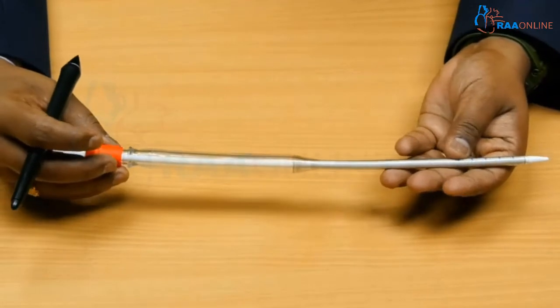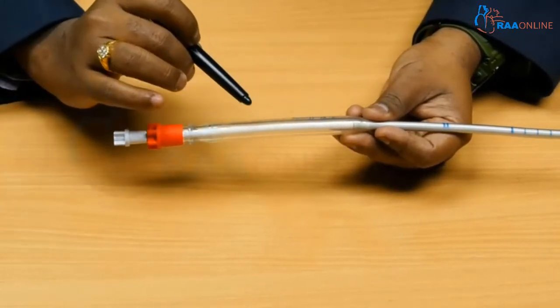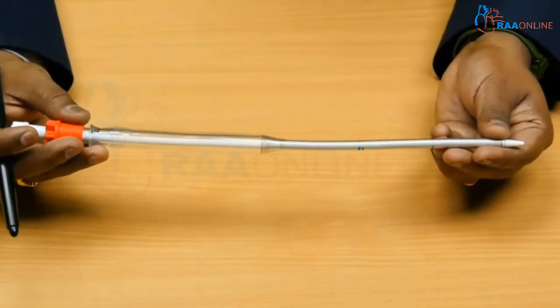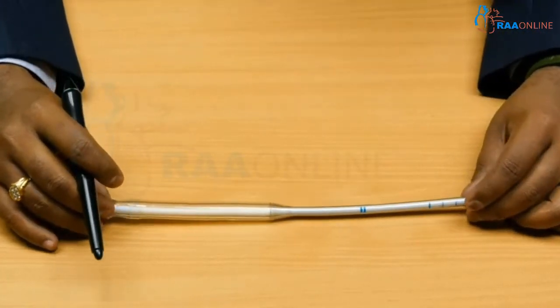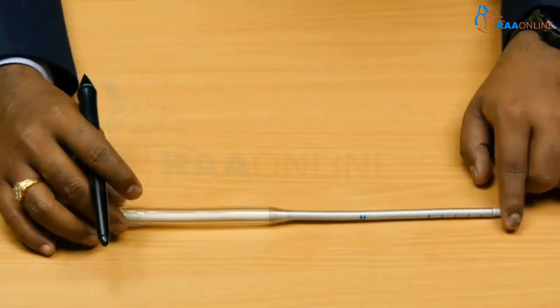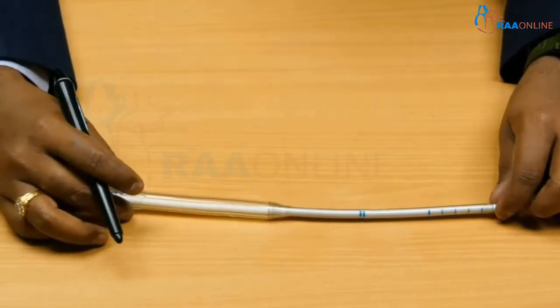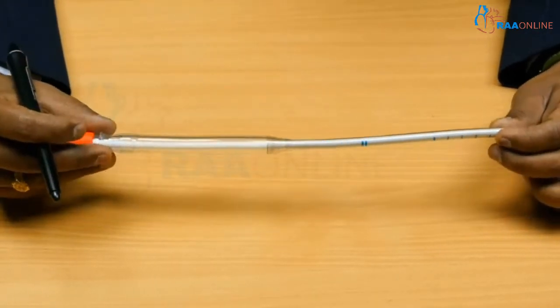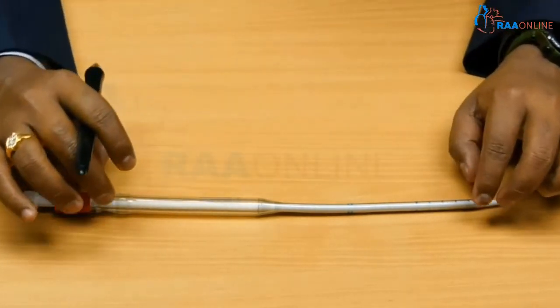The next cannula is the EOPA cannula, which stands for Elongated One-Piece Arterial cannula. This whole cannula comes in a single piece and is elongated. The idea of increasing the size and elongation is to reduce the pressure drop across the cannula. The pressure drop is the difference in pressure as fluid enters and exits the cannula. This elongated design minimizes the pressure drop, allowing more flow with the least pressure difference.